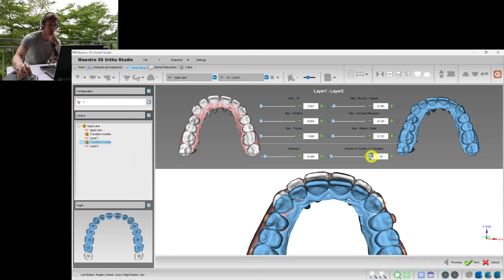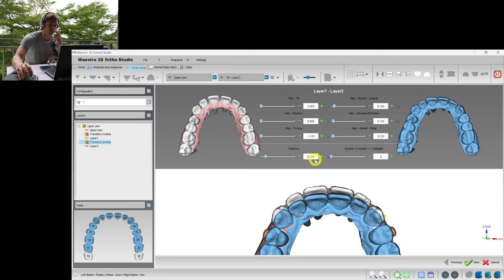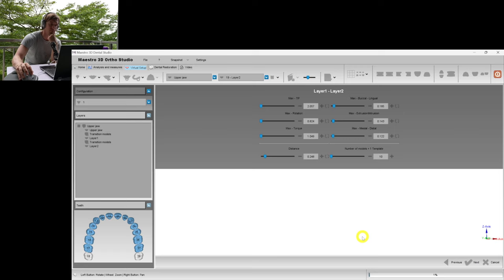We could produce only 9 aligners here because we're fine with the numbers, we can go up to 0.3 at the layer of retraction. But we will act a little bit slower so that we have more even quantity of aligners, or even steps of the alignment of the lower and upper teeth.